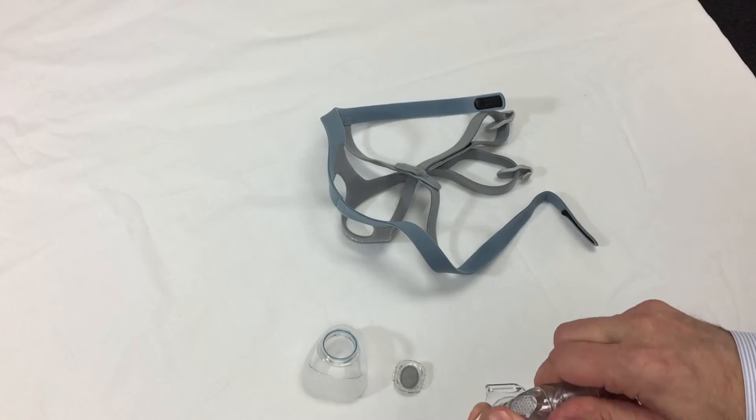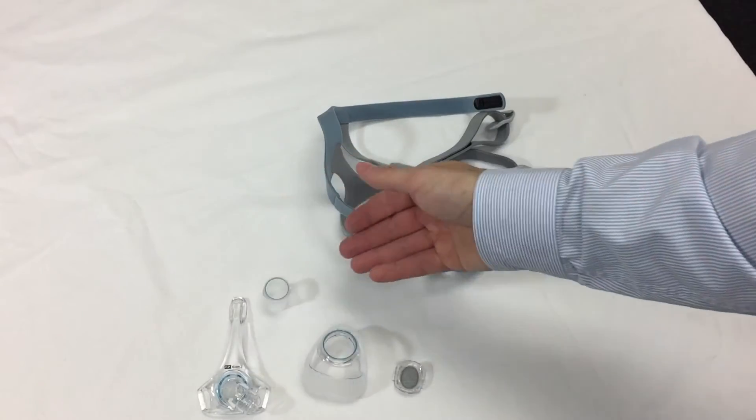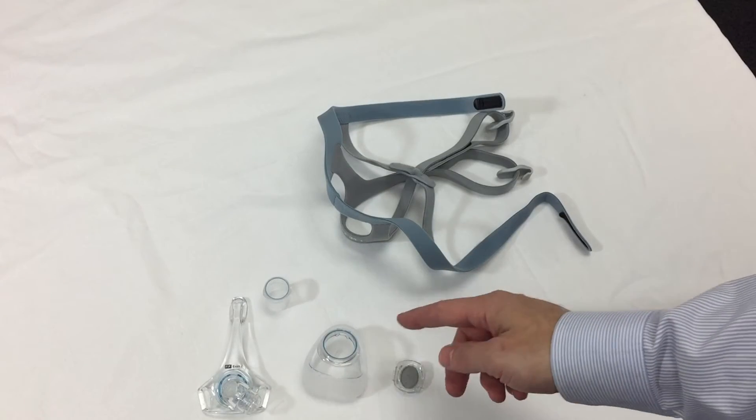So after cleaning it well, disassembling it, and then putting it back together, it's very easy. Only a few parts. And all these parts are made available.